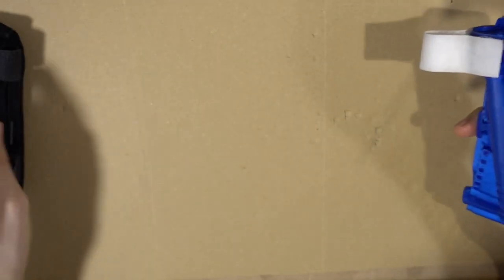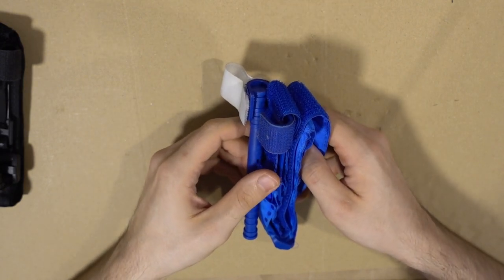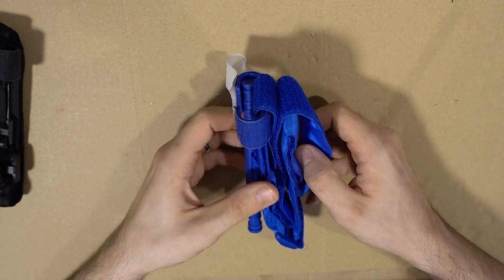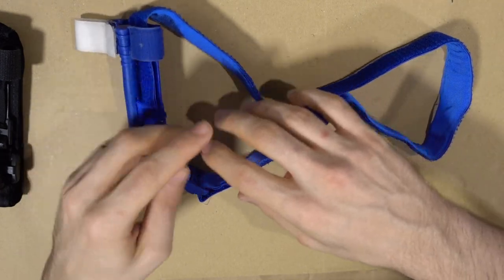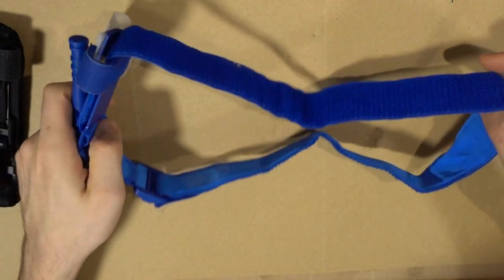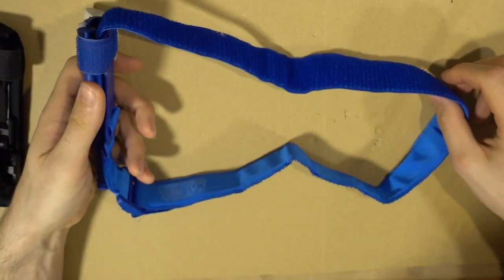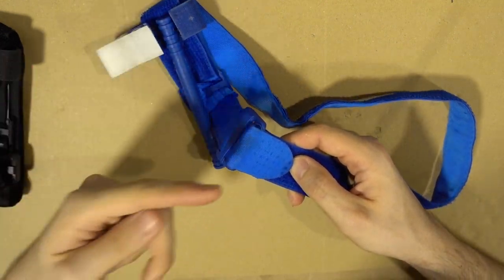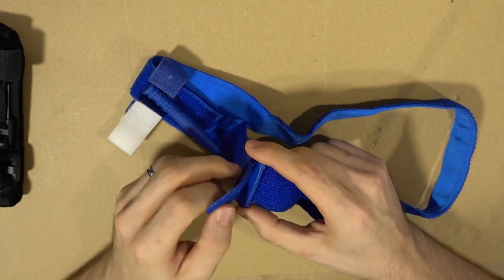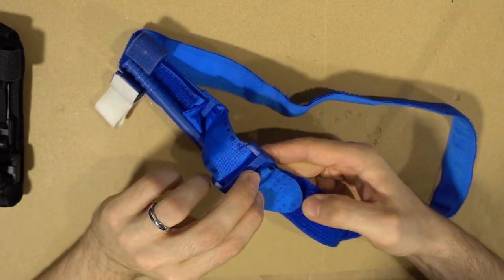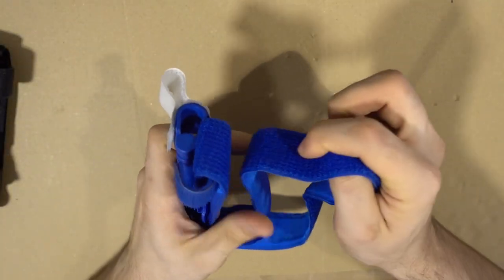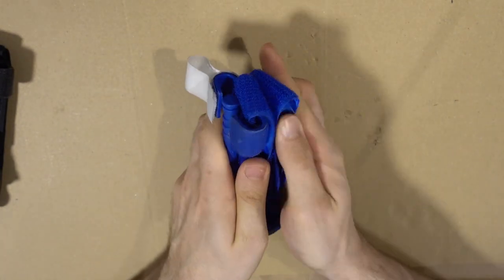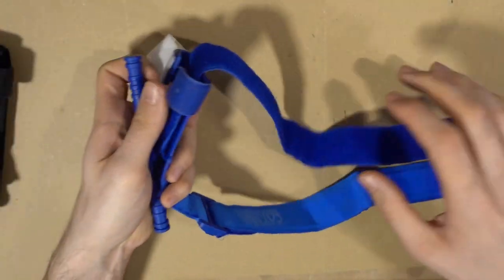Next thing is how do you fold them properly. There's many ways to do that, but the most important thing is you should be able to just pull and it should open completely. No matter how you're gonna wrap it, this is the important thing because you want to be able to open it up far so you have space to actually wrap it around the limb. The important step for any technique is you want to have this little tab, and you just want the little tip folded over like so. So now you can start folding it on this height and that's all there is to it. You pull and it opens.